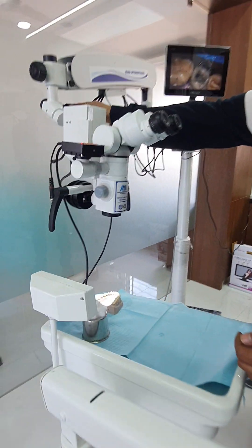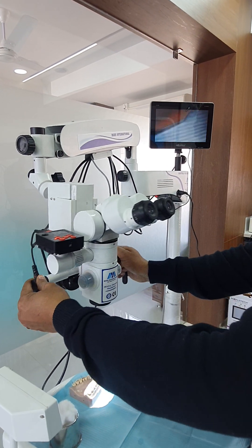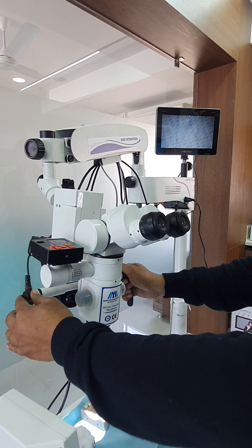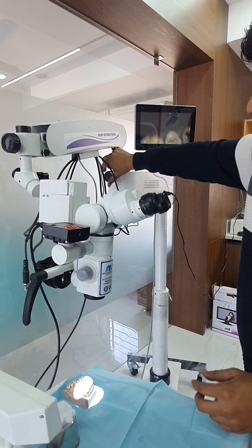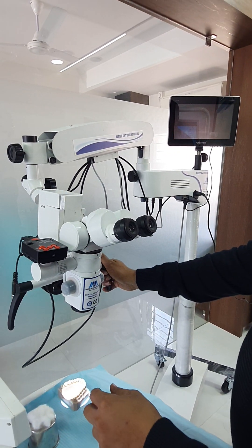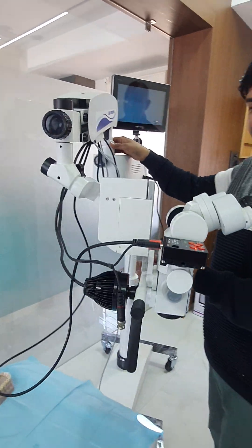When you loosen this knob, it will rotate 360 degrees. When you loosen this other knob, it will also rotate 360 degrees. And when you loosen this knob, the full microscope will rotate 360 degrees.